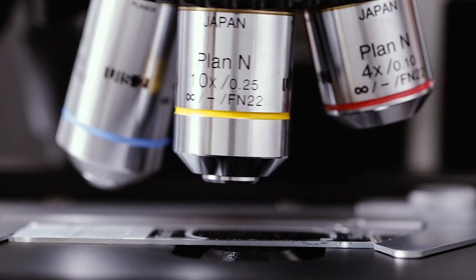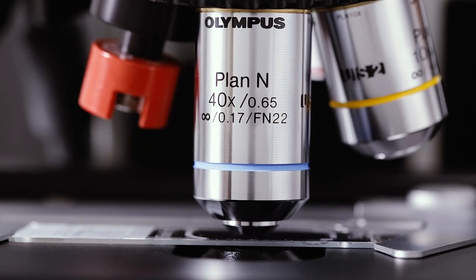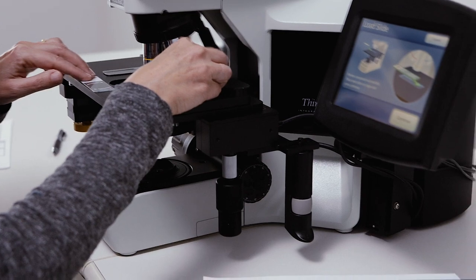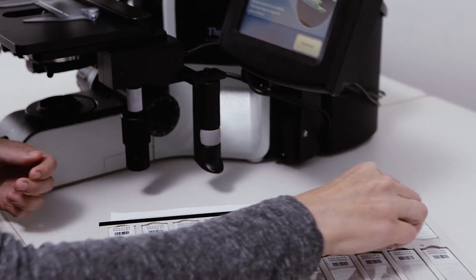4x, 10x and 40x objectives are available. Once the review is complete, the slide is removed and the ThinPrep Integrated Imager is ready for the next case.